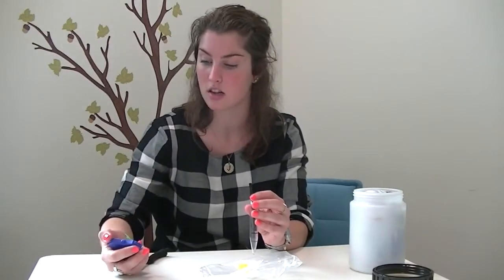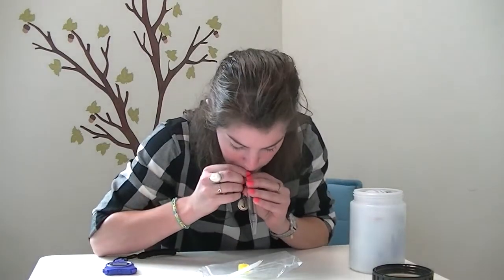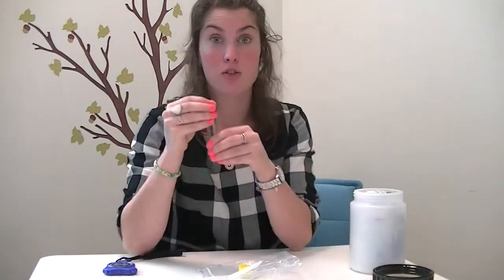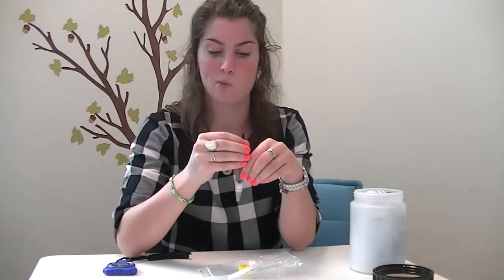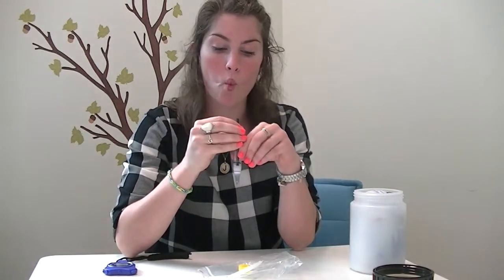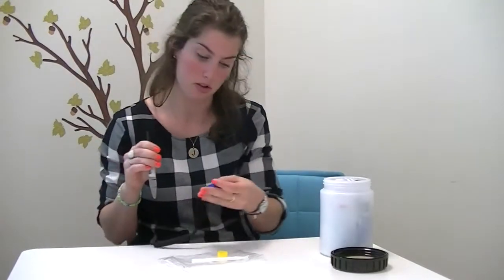When you have a lot of saliva in your mouth, go ahead and start the stopwatch. Keep drooling into the straw, and remember — don't spit. It's really important to just slowly let it go in there. Once you've reached the highest line that you can reach, you can go ahead and stop the stopwatch.